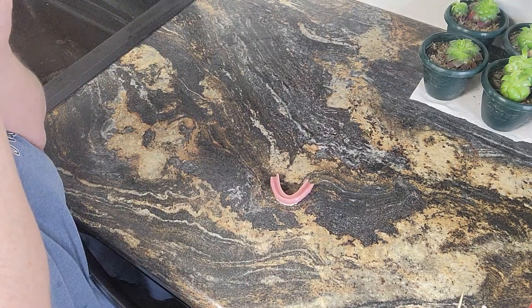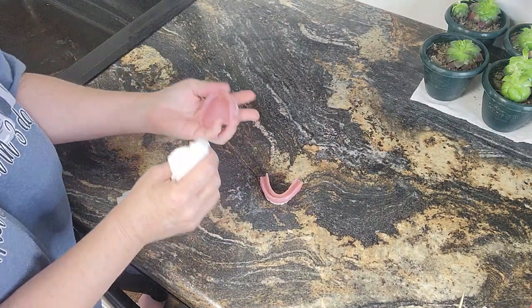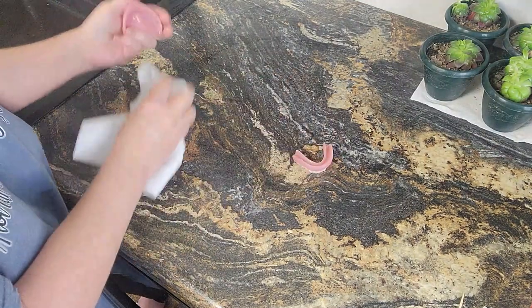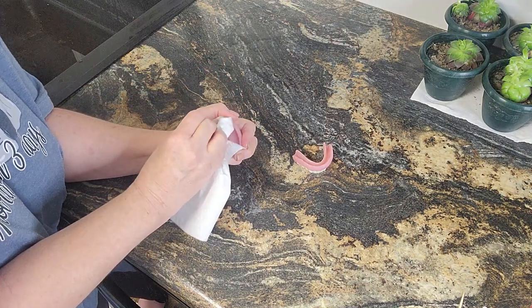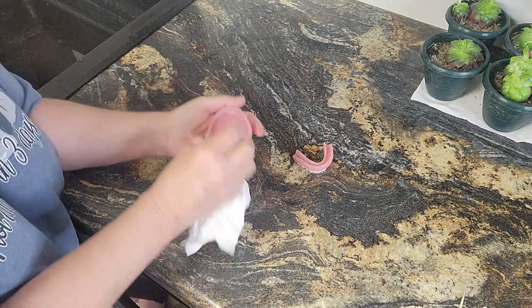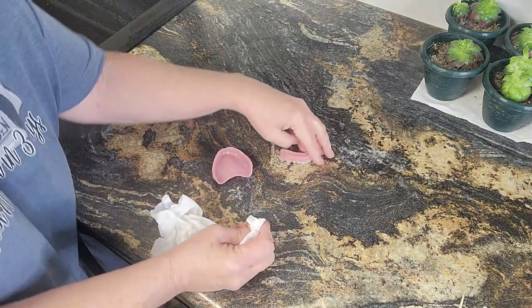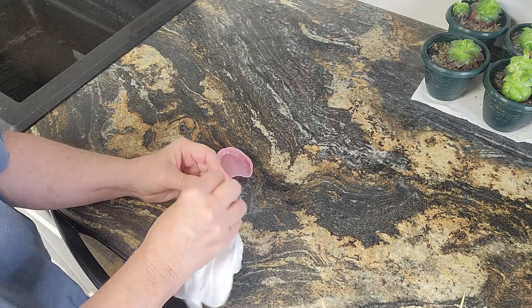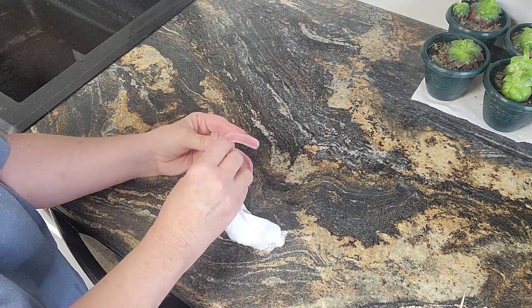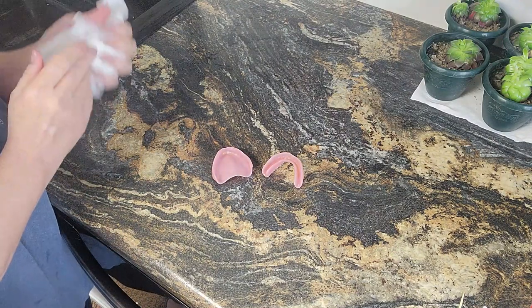I have my dentures here — there's my lower and my upper. Let me rinse these off real quick. Sometimes it depends on the adhesive you use whether you need to apply it on a dry denture or a wet denture. If you're using an adhesive like Dr. B's or Oliva Fix Gold — any oil-based adhesive — it's okay to apply the adhesive with your dentures wet. The water actually activates the adhesive, so it's okay to do that. Try it and see if it works better for you.